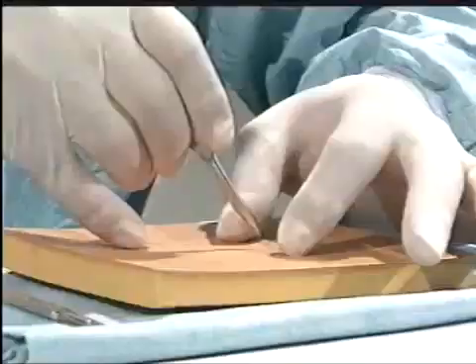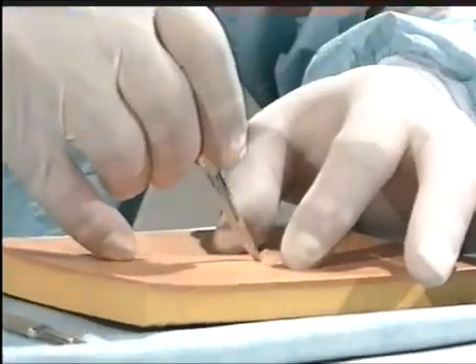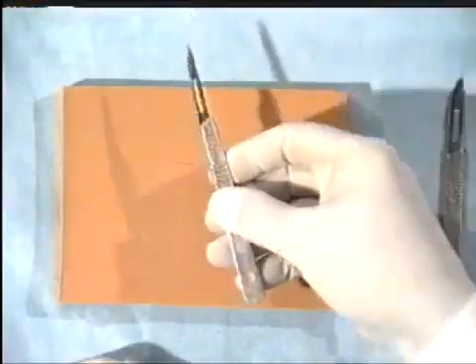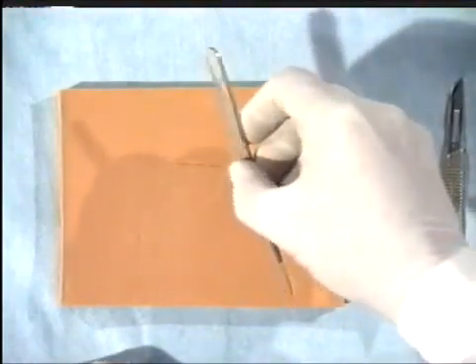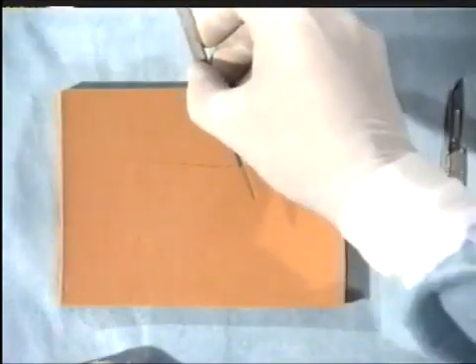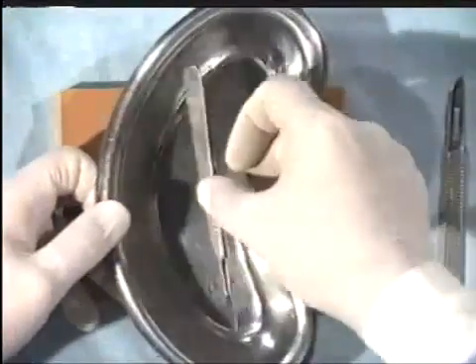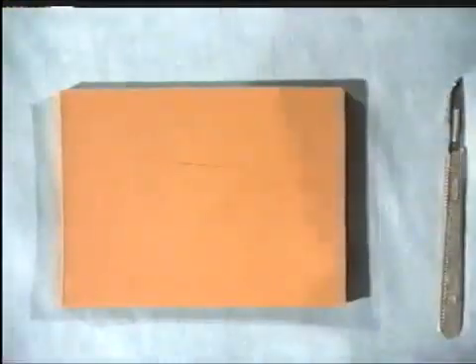Note how the little finger can be used to steady the hand holding the scalpel. When passing a scalpel, never pass it blade first, but handle first with the blade down. However, the safest way is always to put it into a kidney dish and pass it to your assistant or scrub nurse.